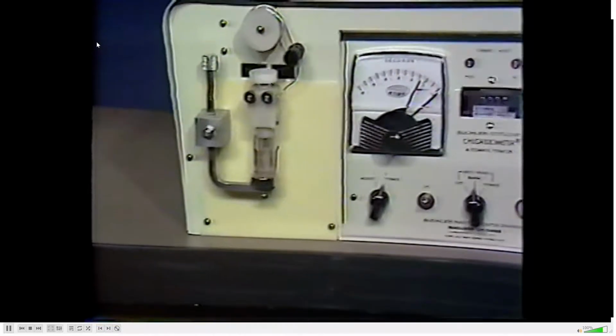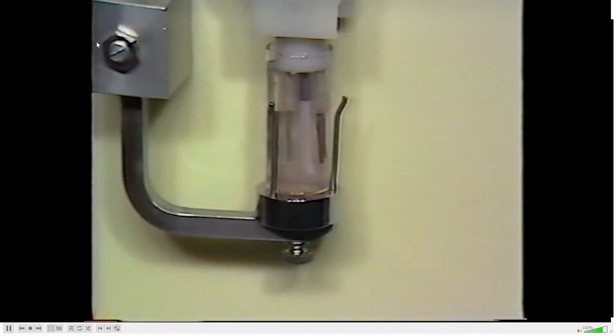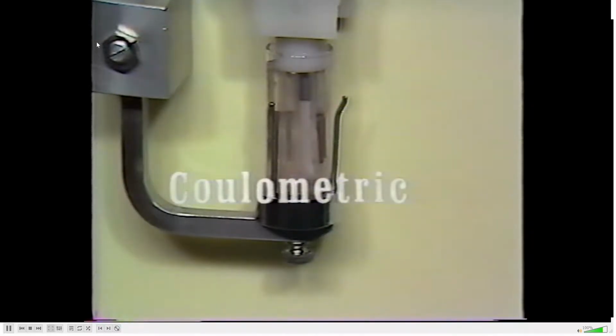By controlling the release of silver ions and measuring a slight excess of these ions in solution after all chloride has been precipitated, we are able to time the reaction electronically. The procedure described is a titrometric method. Most titrations, however, involve the neutralization of acids by bases, using a specific liquid indicator to signal a color change at the endpoint. The chloridometer employs a coulometric titration.